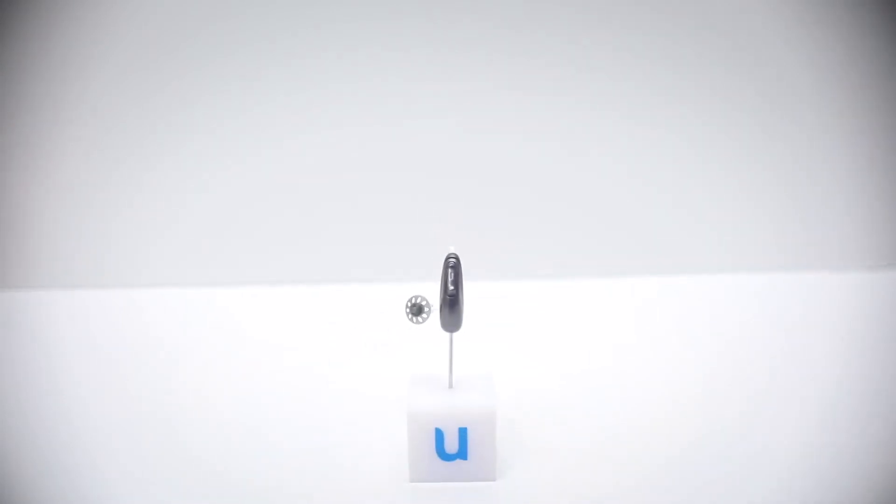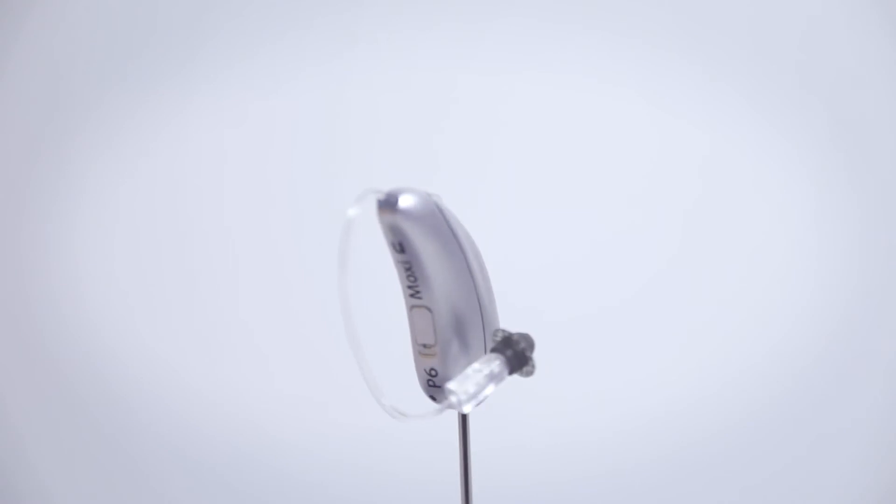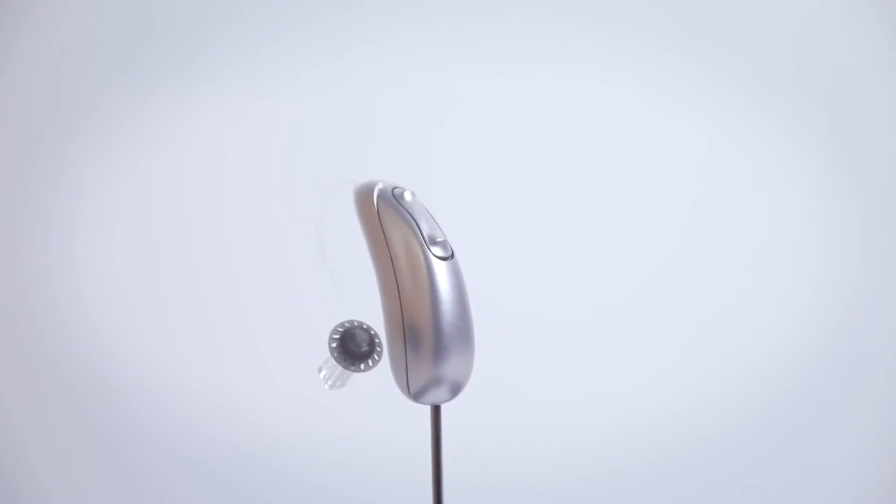As you get larger with the BR, it's because of the rechargeable battery, and then of course the BRT, which is a rechargeable battery with Telecoil, which increases the overall size of the hearing aid again.